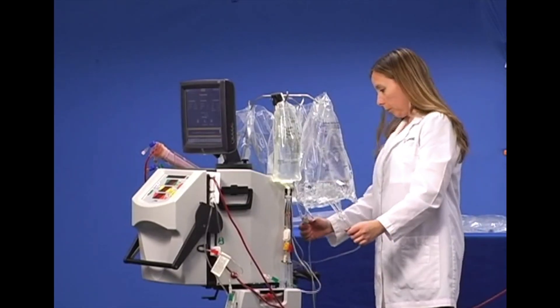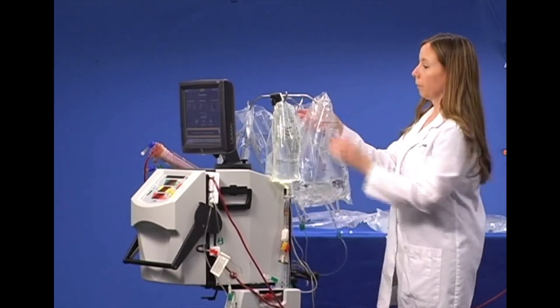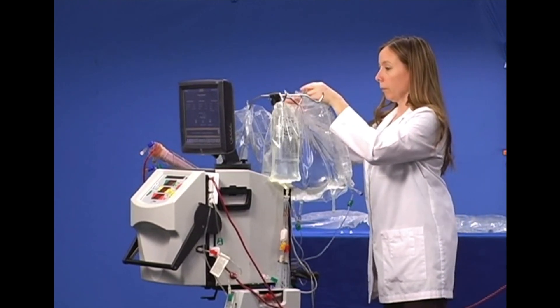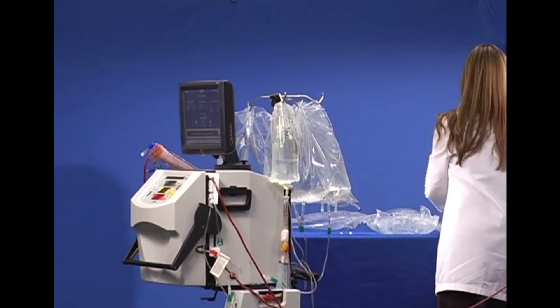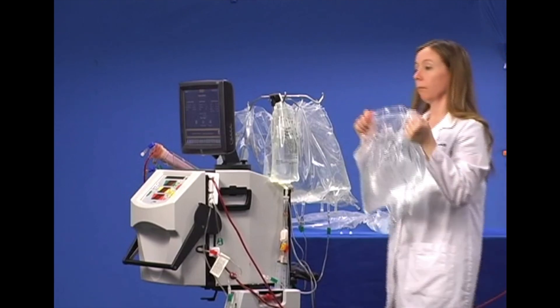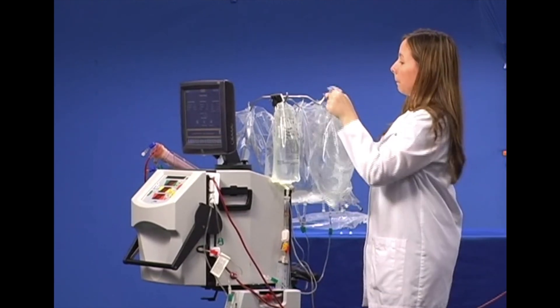Once this is completed, unclamp all the new bags. Clamp the remaining empty bag, then replace with a full bag and unclamp.